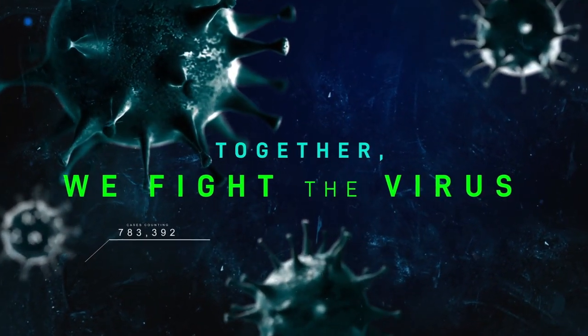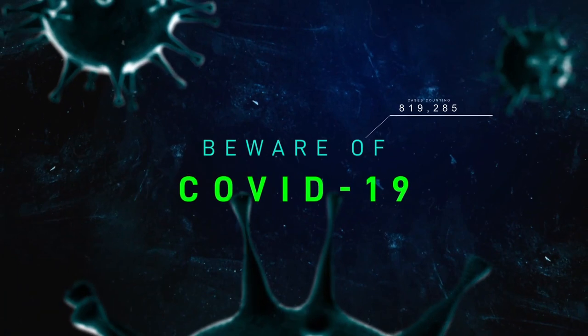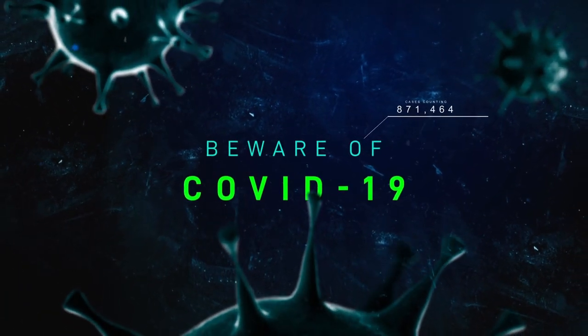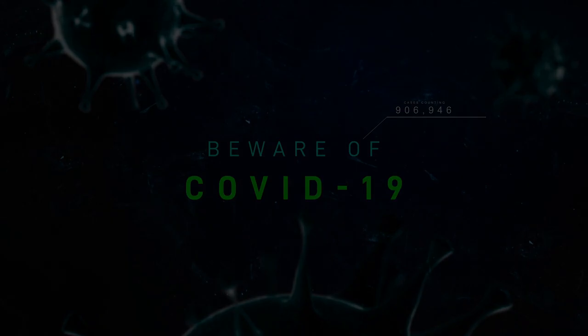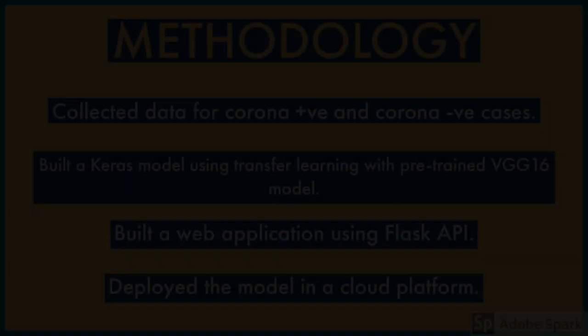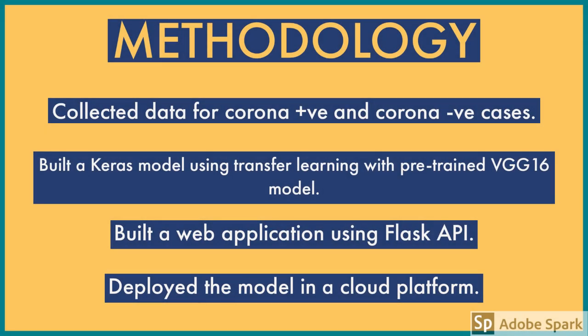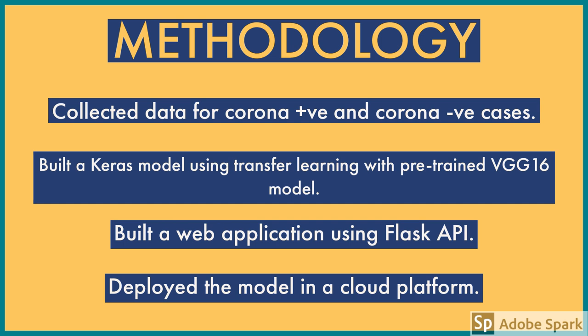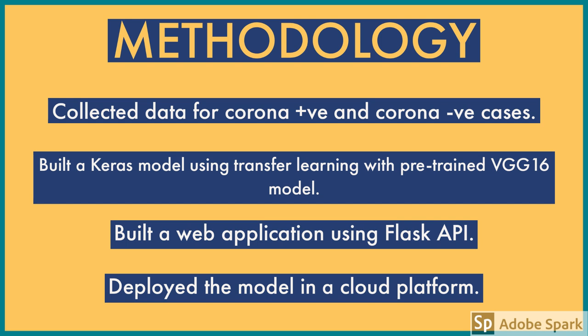All patient X-ray images will be analyzed automatically to help in detecting and predicting COVID-19. Now, let's discuss the methodology of our work. We have collected X-ray data of corona positive and negative patients, and with that, we have built a Keras deep learning model to predict if a patient is affected by corona.